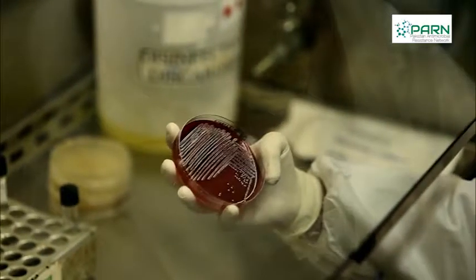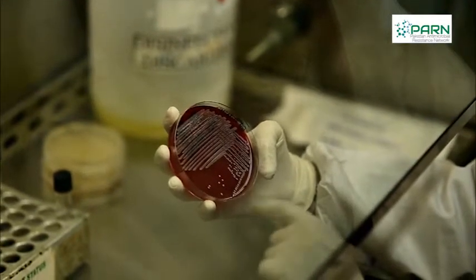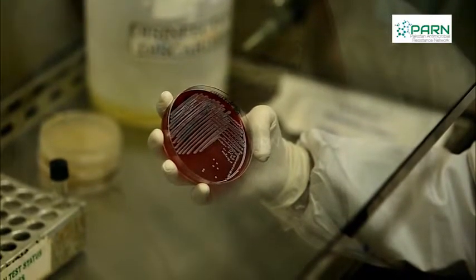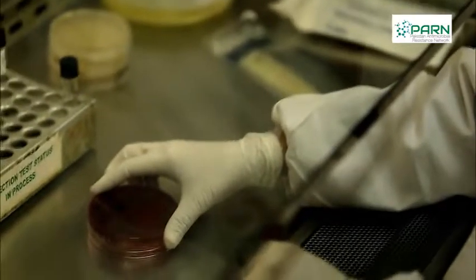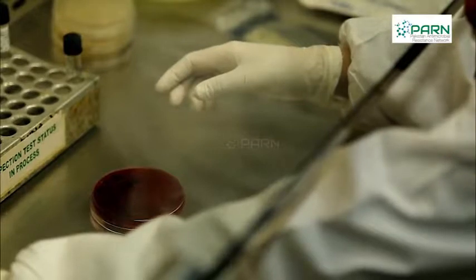You should always pick well-isolated colonies of microorganisms with a sterile loop from a non-selective agar with 18 to 24 hours of growth.